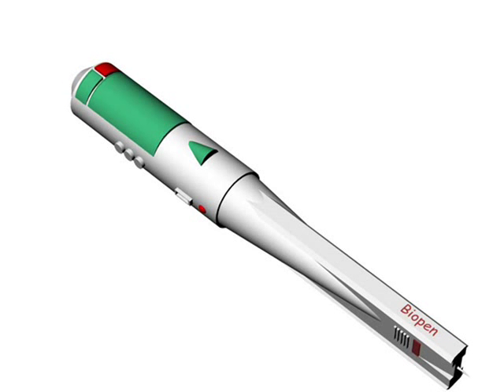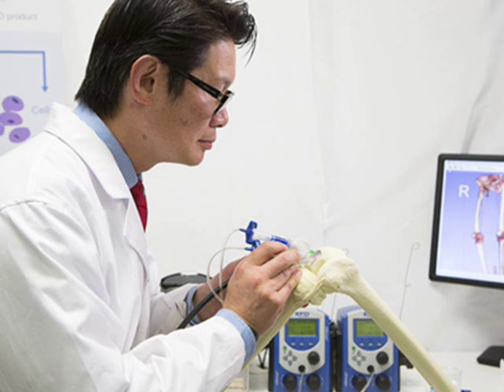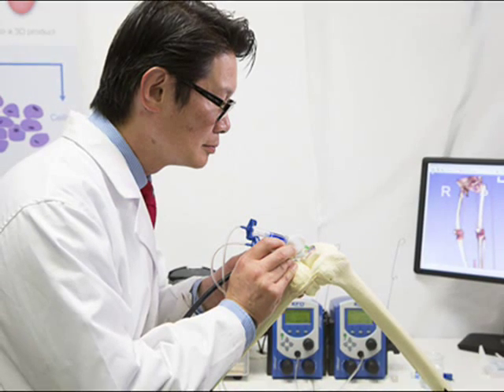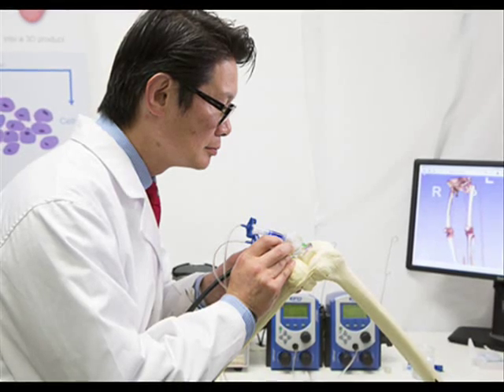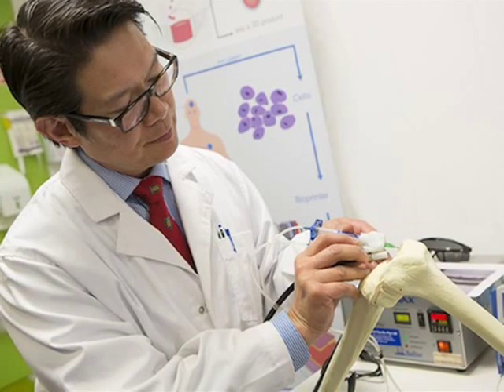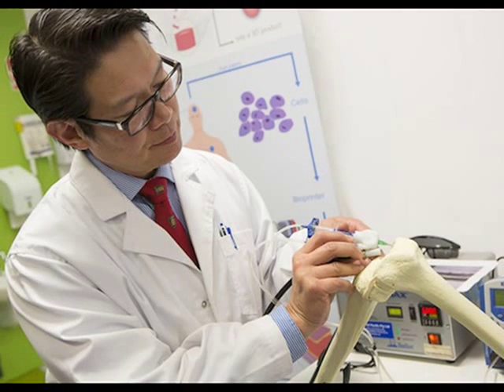The device contains stem cells and growth factors, giving surgeons greater control over where materials are deposited. It will reduce the time the patient is in surgery by delivering live cells and growth factors directly to the site of injury, accelerating the regeneration of functional bone and cartilage. It will also eliminate the need to harvest cartilage and grow it for weeks in the lab.